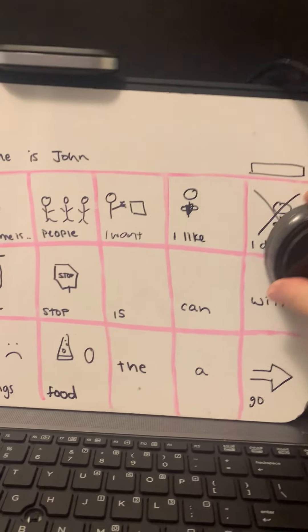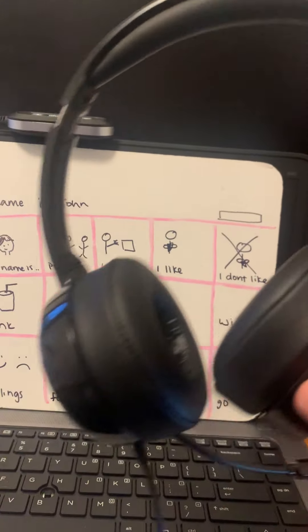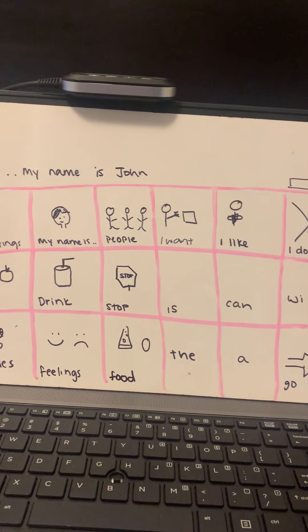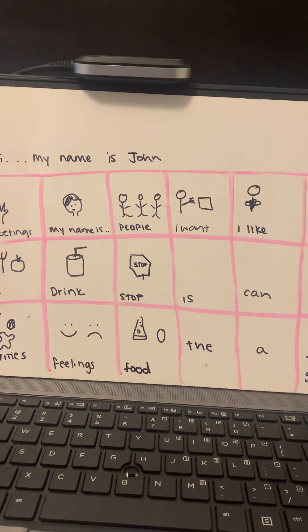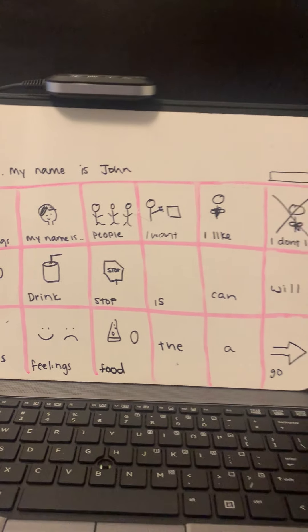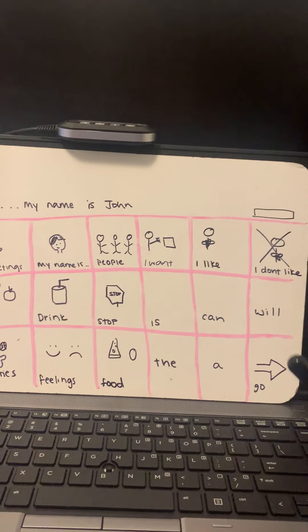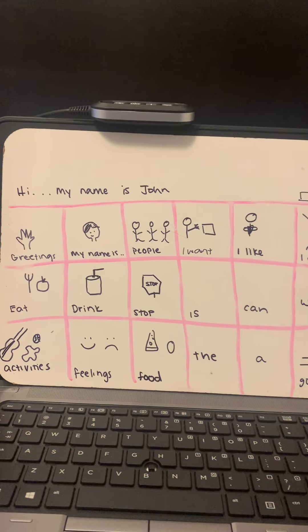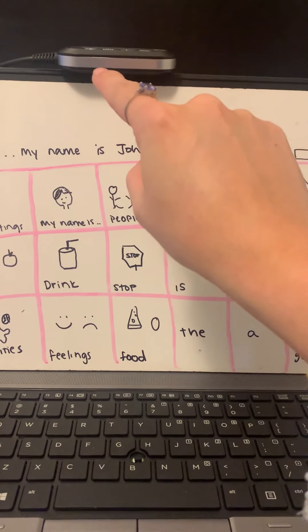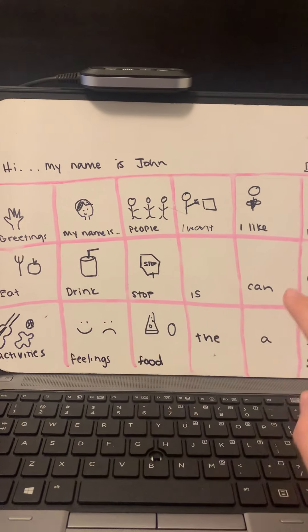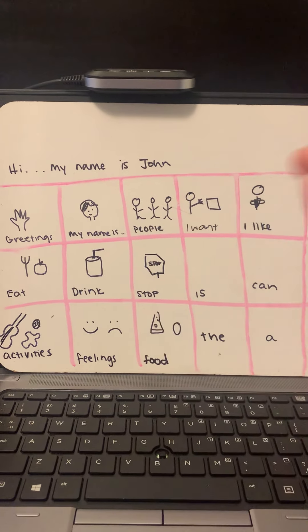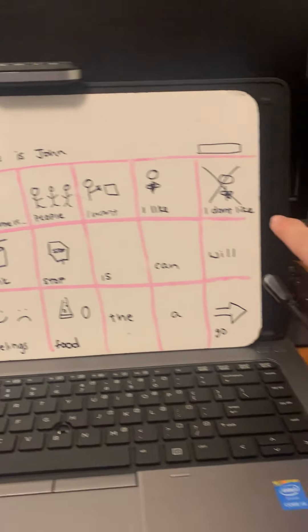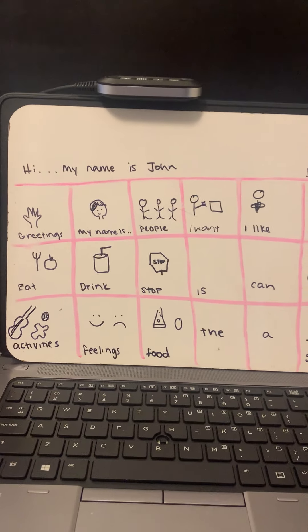Let's walk through it quickly. I made sure there is a headphone jack right here, with a set of headphones John can use — we can put them on the back of his chair and he can put them on when he needs them, such as during independent work or when not doing classroom discussions. Up here we have an eye tracker that will track where John is looking on the device and create sentences for him, which he can send when he's ready.